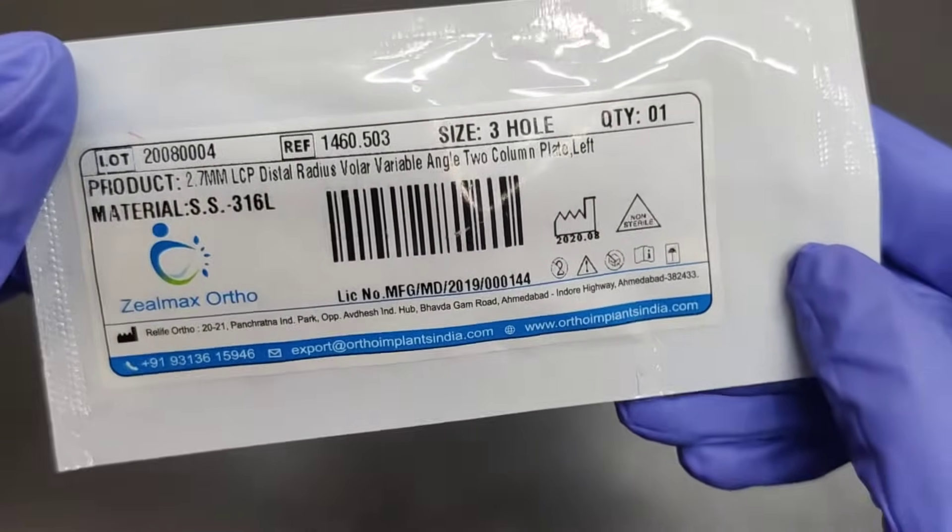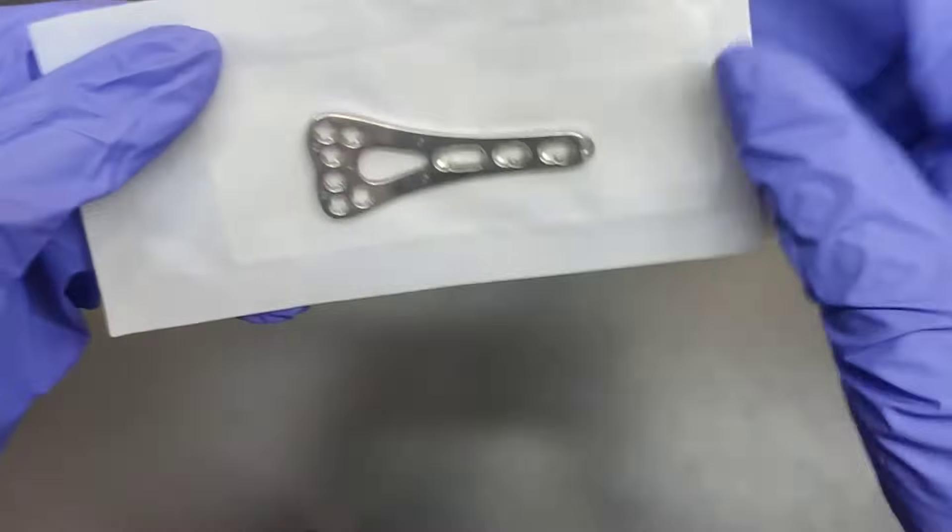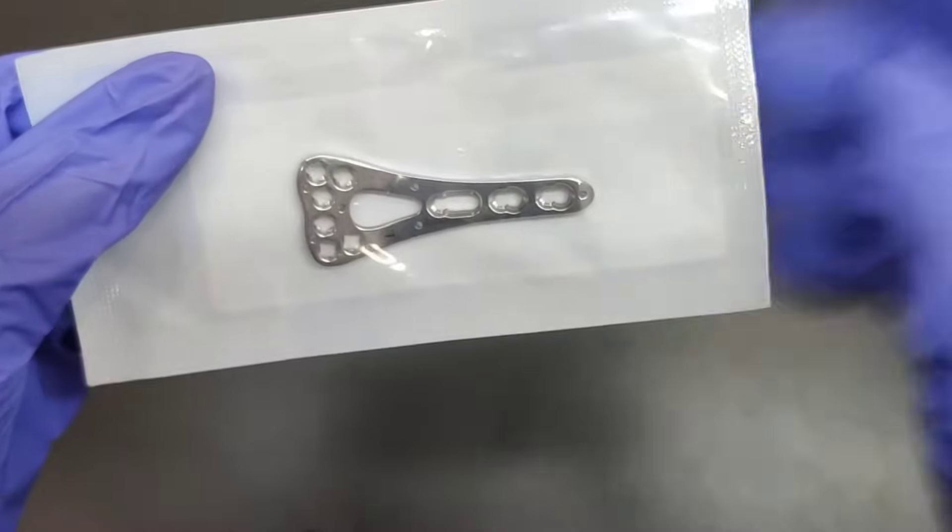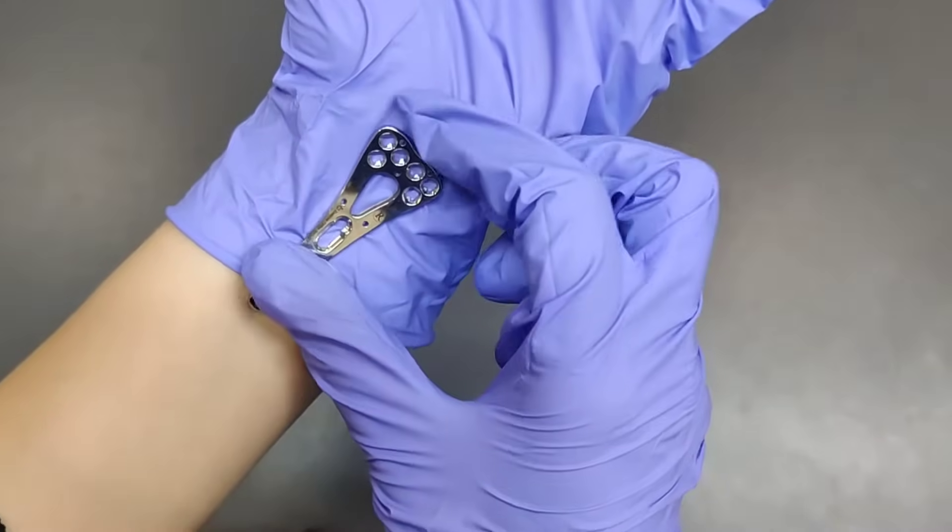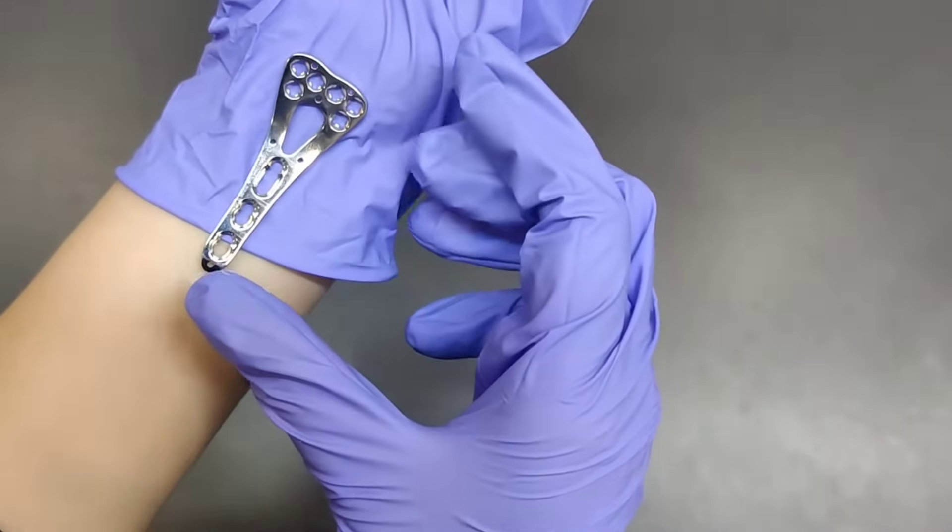Crafted with precision, these plates are uniquely contoured to perfectly fit the natural shape of the distal radius, offering a comprehensive solution for a wide spectrum of fracture types, ranging from simple to complex.